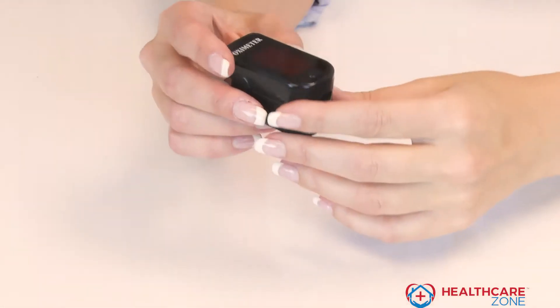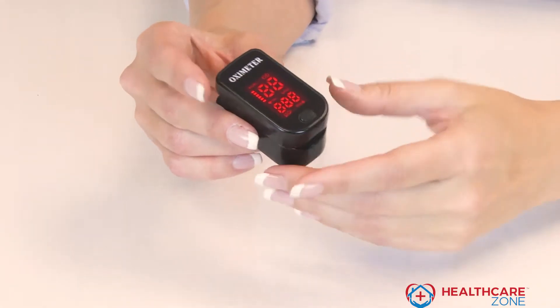Now, it works so easy. All you do, push the little button on the front. It takes two AAA batteries in the back, and this is going to be able to give you that security of knowing just where your health is.